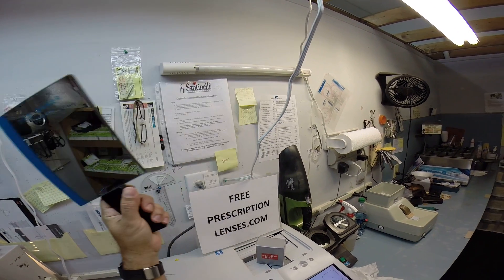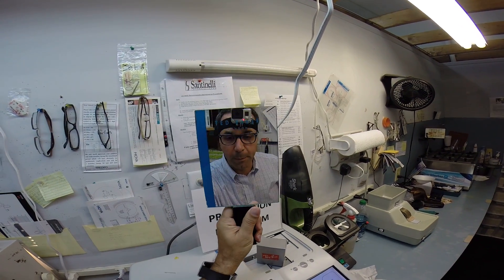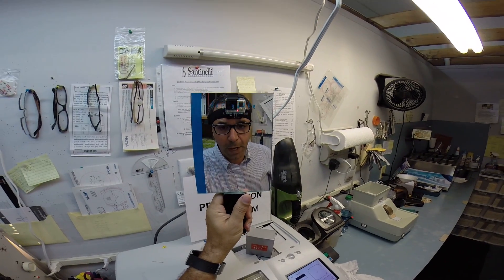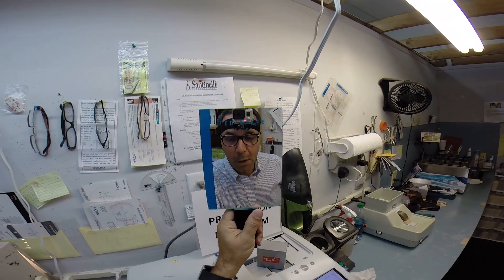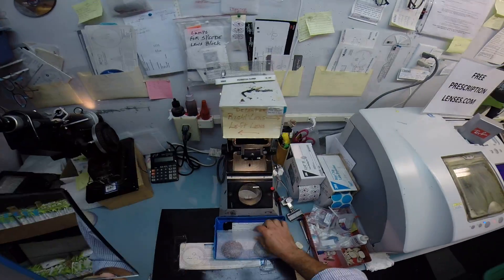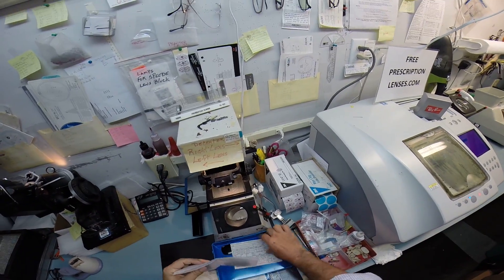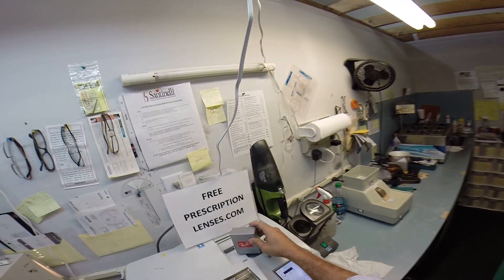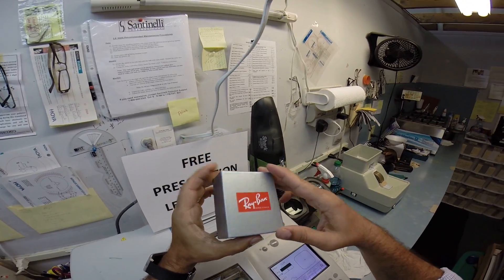Hey Randall, Matthew here with FreePrescriptionLenses.com. With the help of my GoPro camera, I'm going to show you how I cut prescription polarized lenses. What color are they? They are the G15 lenses for a Ray-Ban. Look at this cute little box.